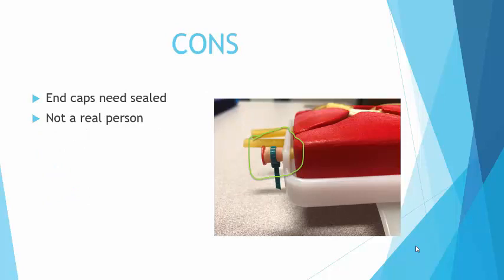The cons of this system are that when you are pumping the syringe and increasing the pressure, if you do it too hard that red end cap will fly off, causing all of the fluid in your system to spray your so-called patient — and students don't typically like that. What I came up with is to put an adhesive glue right inside that part of the tubing and then use a zip tie to hold it on better. The glue dries up and that has seemed to be pretty effective.